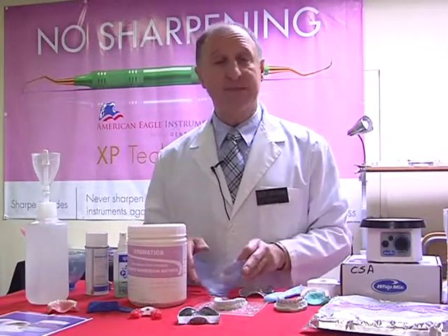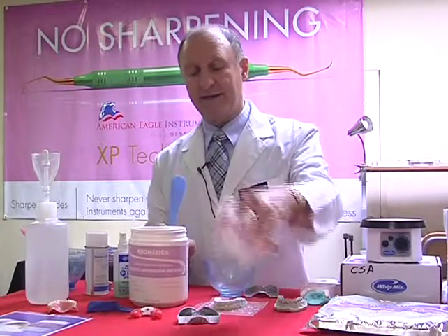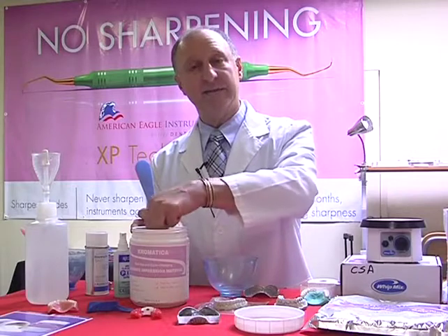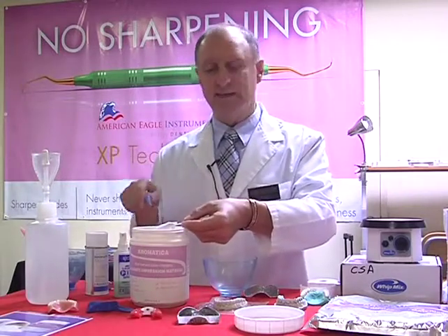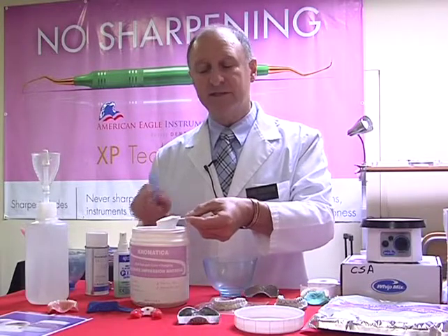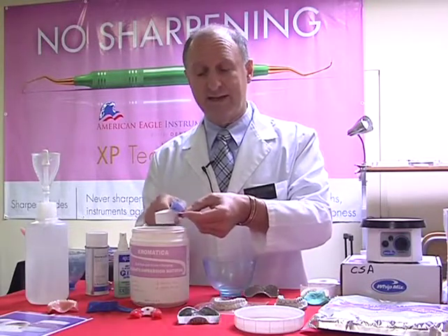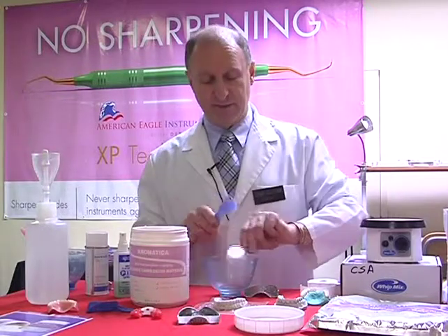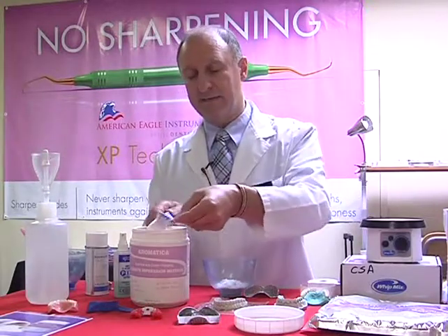So, I'm now ready to mix the alginate. So let's take hold of our spatula. And in this case, I'm going to take 2 scoops of the material, so packing the scoops tightly. Because I revolved or tumbled the canister 3 times, I don't need to tap on the surface of the scoop that's normally taught in most schools. I now slide off the amount, and I'm going to do this twice. Apply that into our bowl, and do the same thing again.